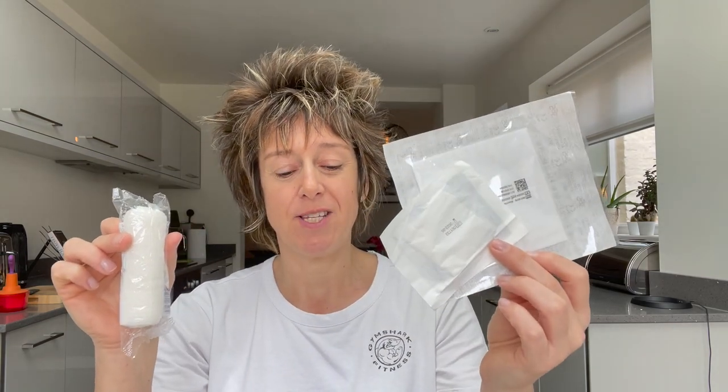We'll go through some of the items you can put inside the first aid kit — you might not actually know what they are. We use the words bandages and dressings and expect everybody to know what they are. So these here are what some people might call a dressing or a bandage — I would call them a wound dressing, because here you've got a bit of gauze and a bandage attached. You can have them separately in different sizes, and then you could have a bandage like this that wraps around to secure them in place, or you could get a bit of tape — though some people might be allergic to tape.